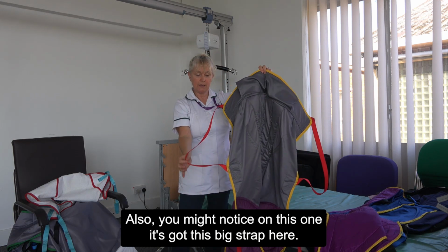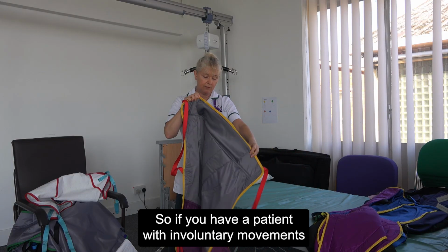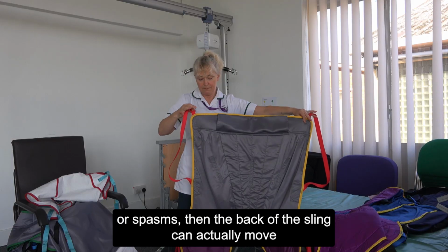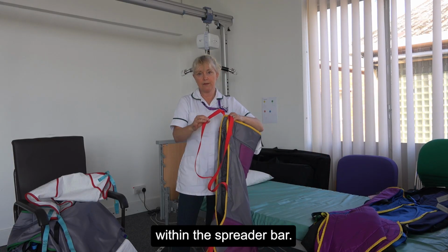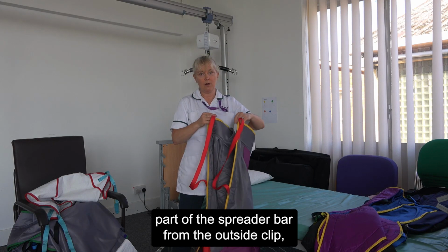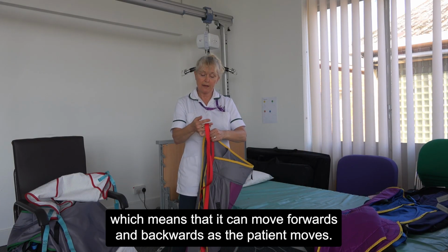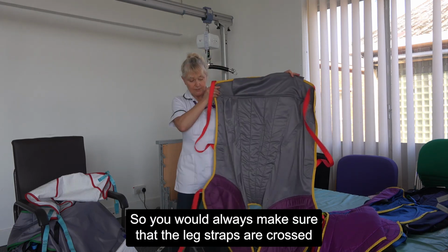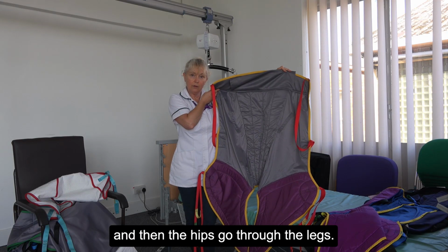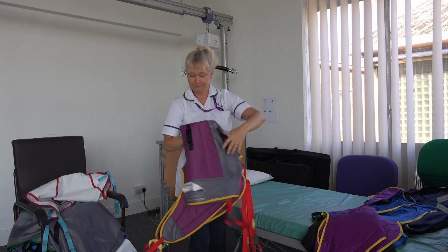Also, you might notice on this one, it's got this big strap here. This is actually called a reflex sling. So if you have a patient with involuntary movements or spasms, then the back of the sling can actually move within the spreader bar. So this strap here would go through the outside part of the spreader bar on that outside clip, which means that it can move forwards and backwards as the patient moves. So you would always make sure that the leg straps are crossed and then the hips go through the legs. Lovely, safe sling as long as applied correctly.